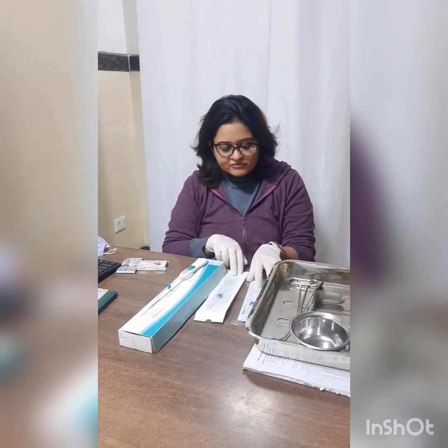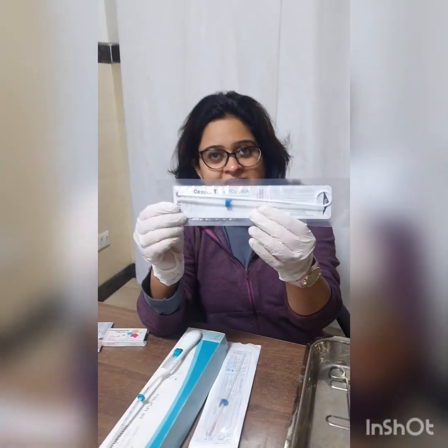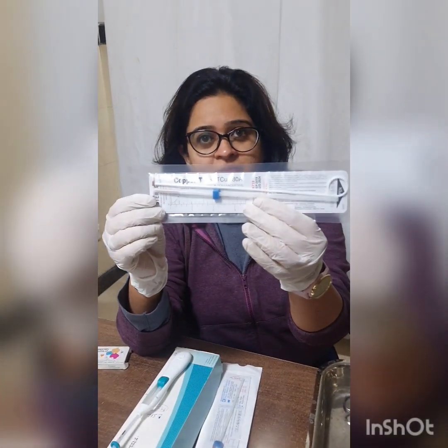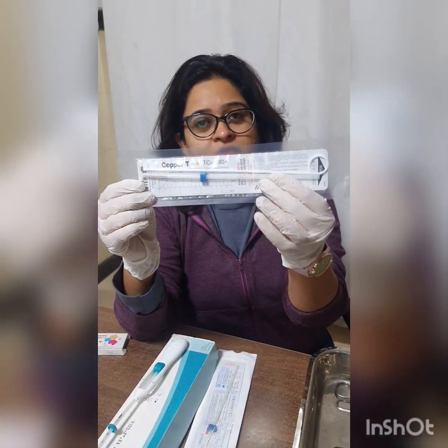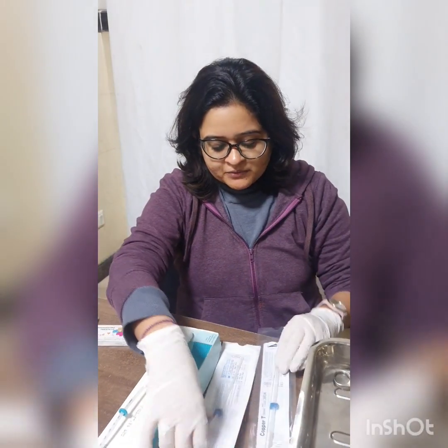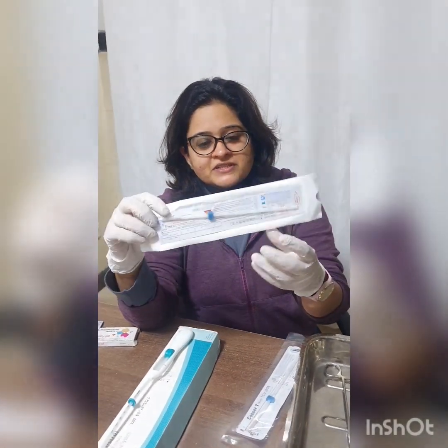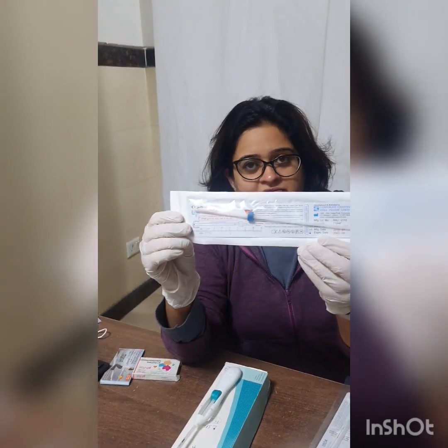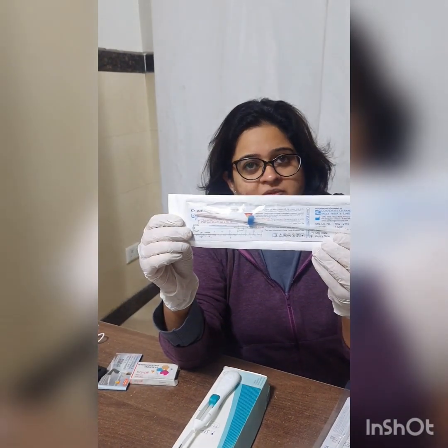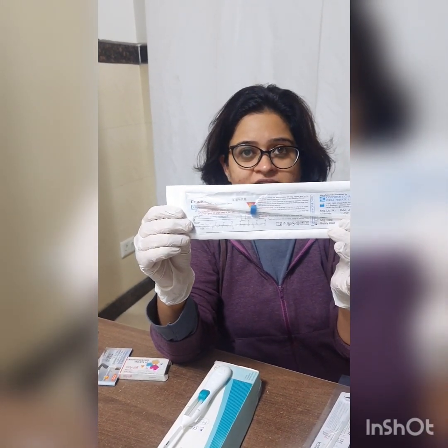The second generation are the copper-containing devices. I have two as an example. One is the Copper T-380A, available from the Government of India, which can be used for a duration of 10 years. We also have the multi-load, or Copper T-375, which is also available from the Government of India and used for a duration of 5 years.